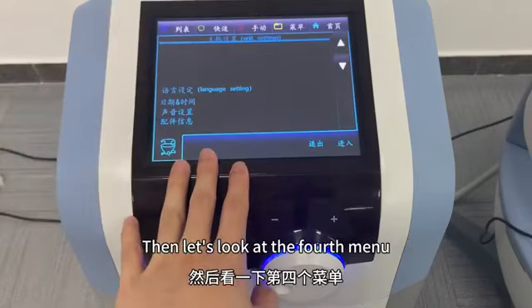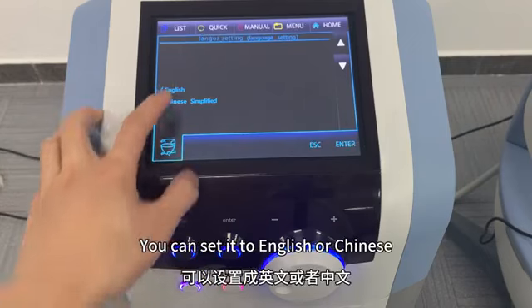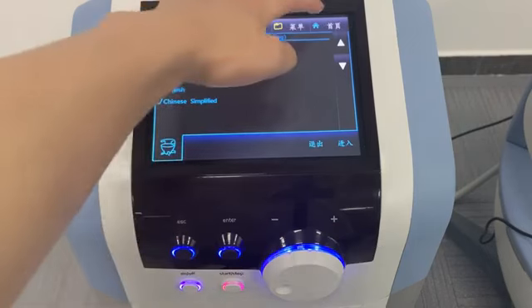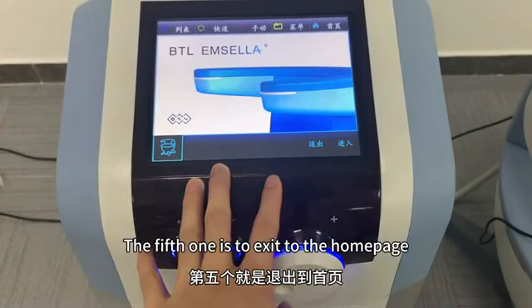Then let's look at the fourth menu. You can set the language here. You can set it to English or Chinese. The fifth one is to exit to the home page.